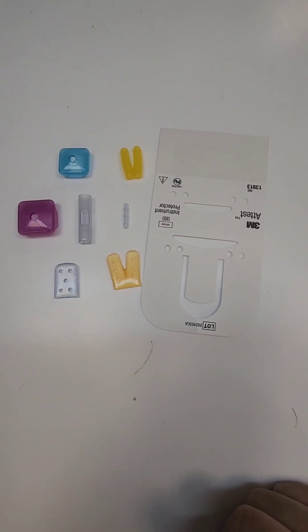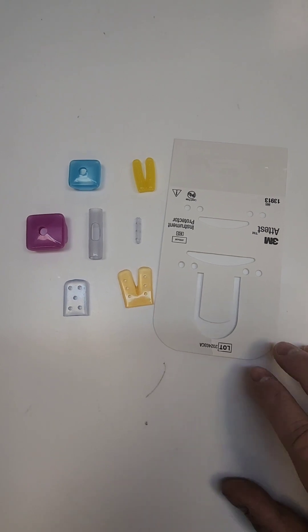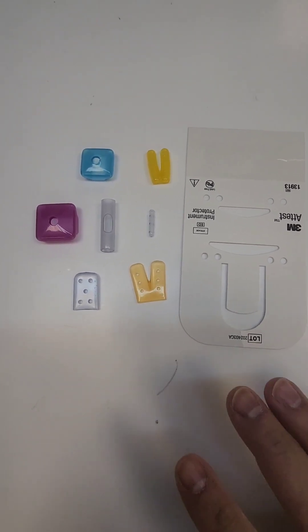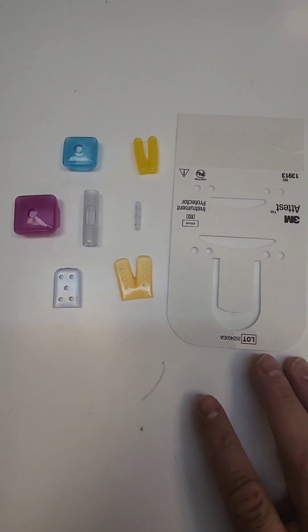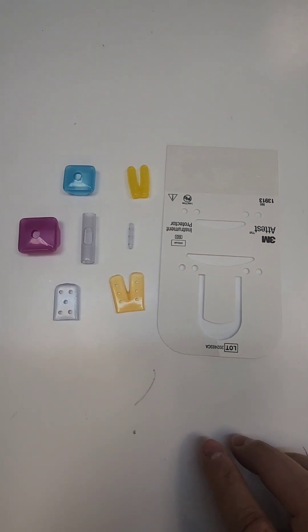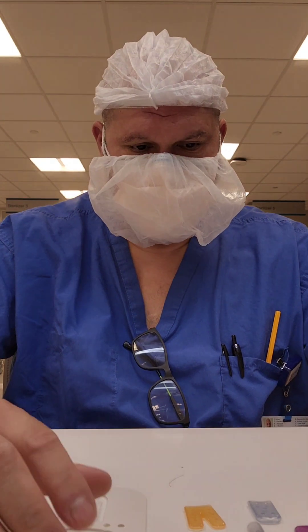What's going on guys? Welcome back to WDYDCSP — What Do You Do as a Central Sterile Processor? Today I want to go over the world of tip protectors — those little rubber or plastic things that you put at the end of your instruments to protect them. So let's get right into it.